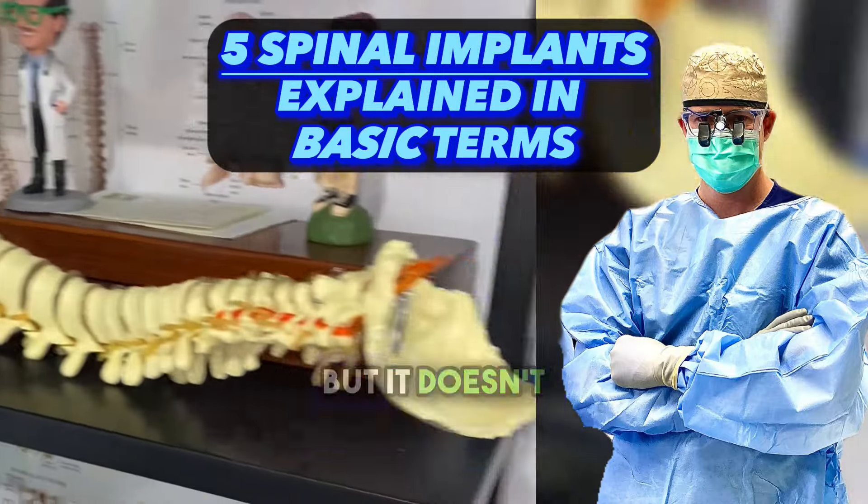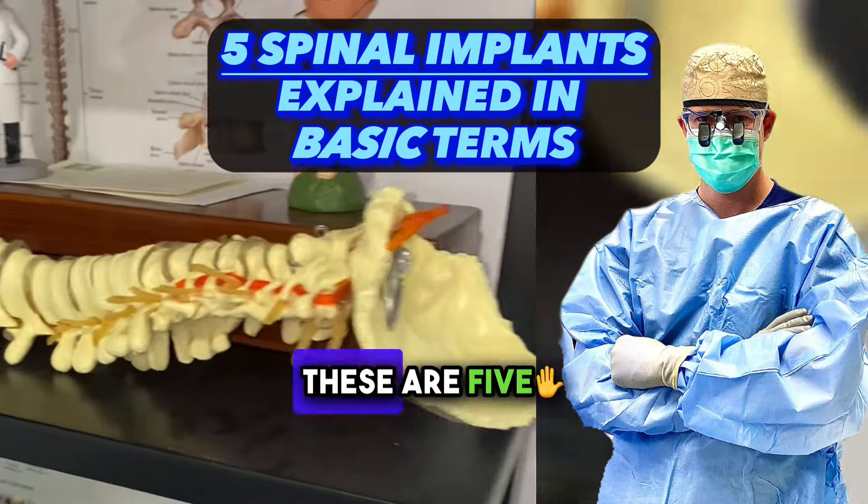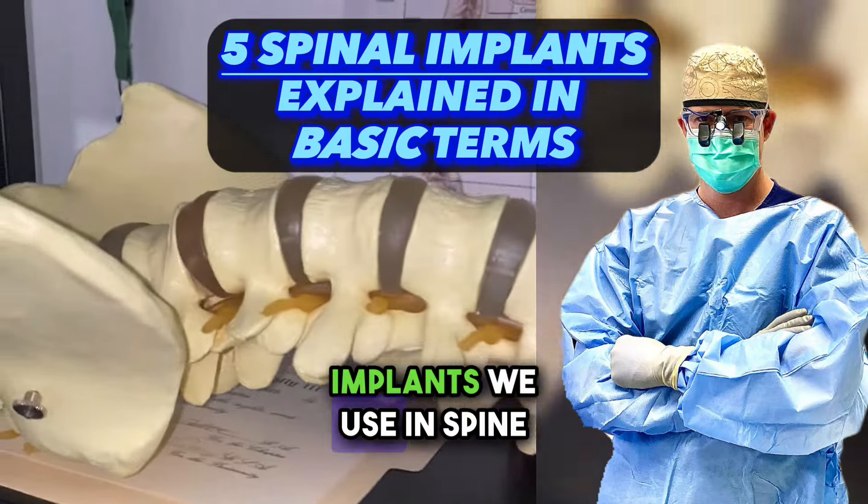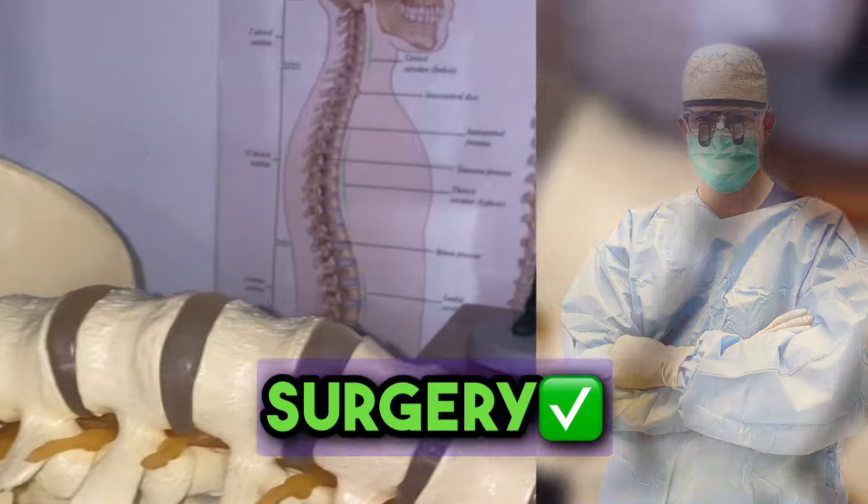Spine surgery is confusing, but it doesn't have to be. These are five common spinal implants we use in spine surgery.